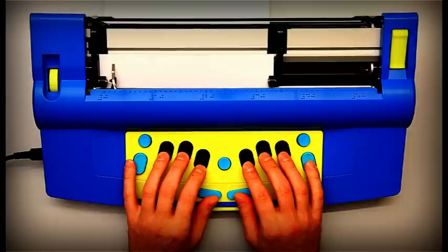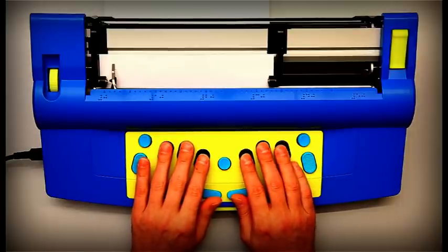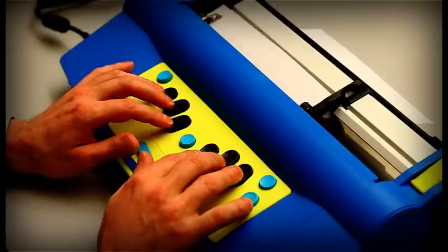The six Braille keys arranged in a slight curve are oval, black, and smooth with a ridge.